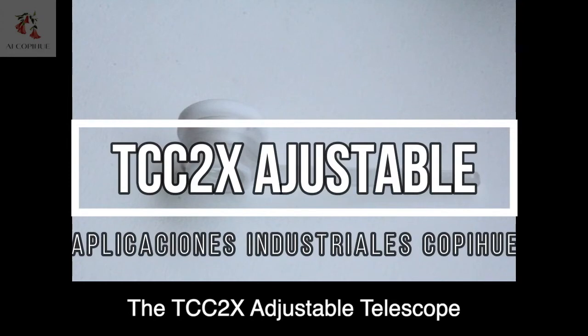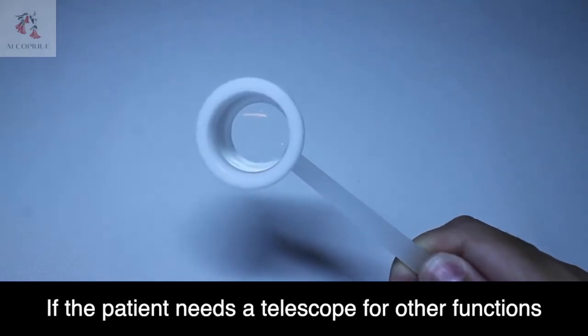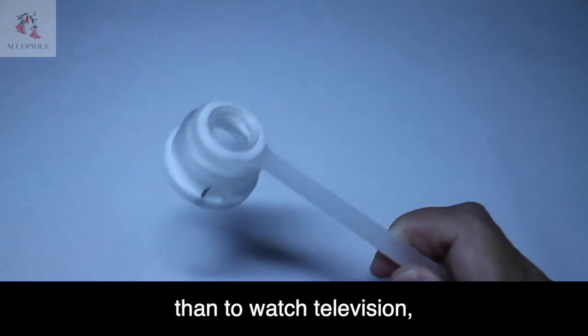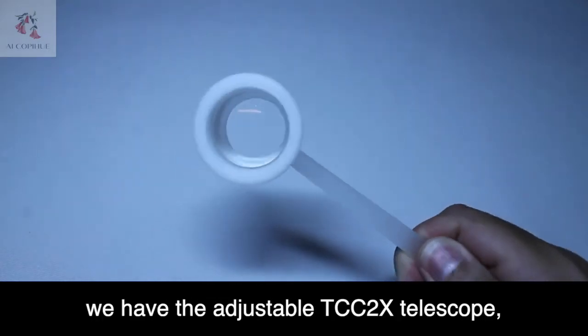The TCC2X Adjustable Telescope. If the patient needs a telescope for other functions than to watch television, we have the adjustable TCC2X telescope.